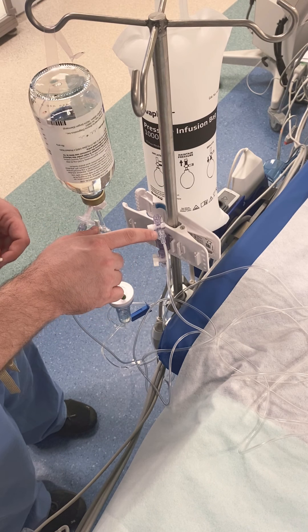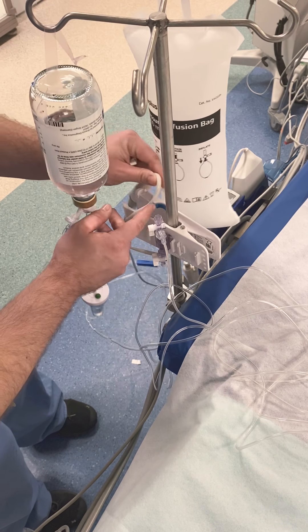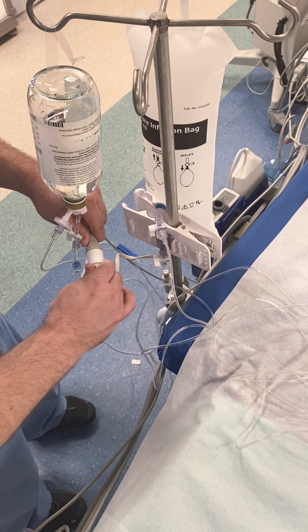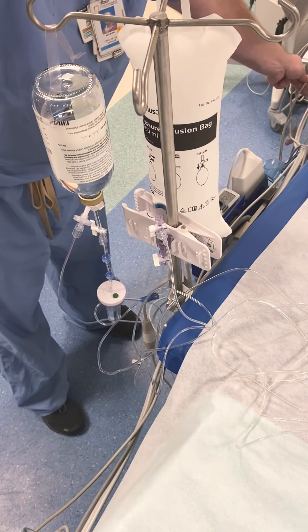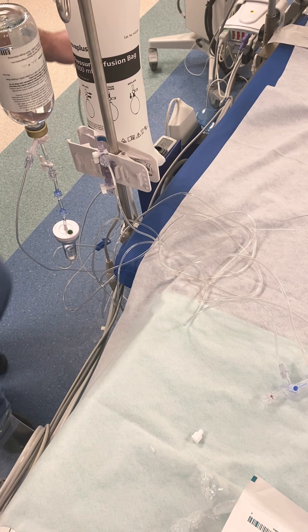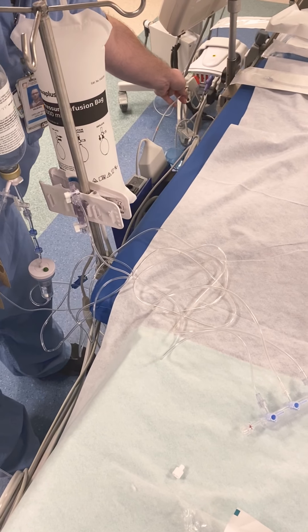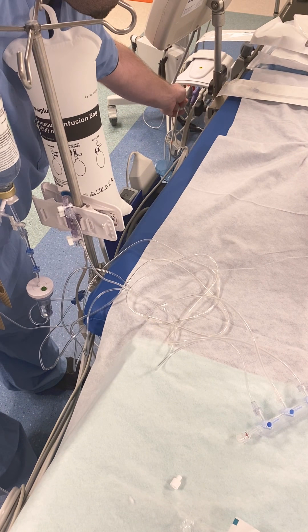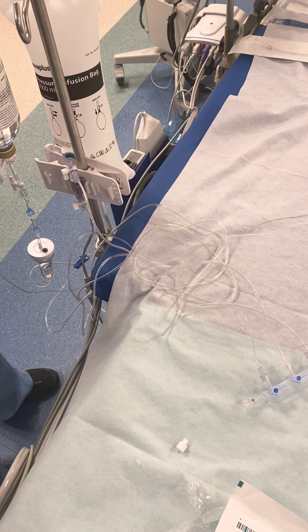In a moment they'll flush over here — make sure there are no air bubbles, but as far as the initial connections go, you are good to go as a circulator with everything connected. This electrical connection is a cord that comes out of the bottom of the transducer. Here's the red connection — if you use P1 or whatever P-channel you use, you'll plug it into the G-box over here. Make sure it's a good connection on both ends, and be sure to tell your monitor person which P-channel you are using.